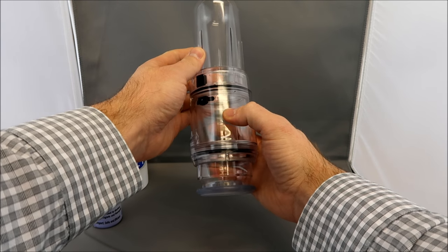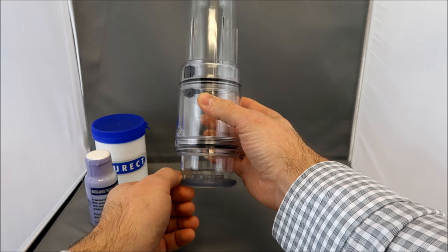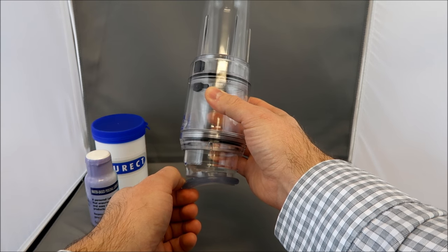Once you achieve the full erection, you will press the edge of the tension system to release the vacuum pressure.